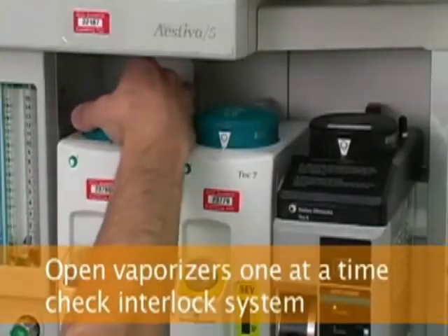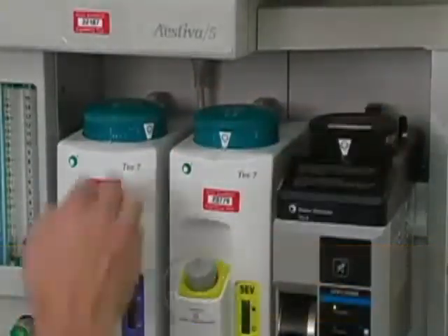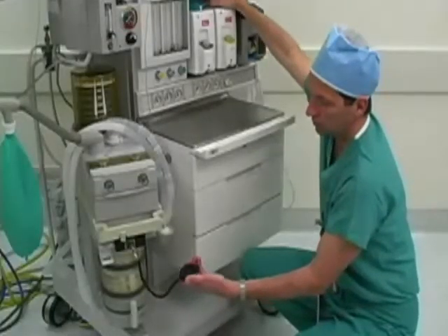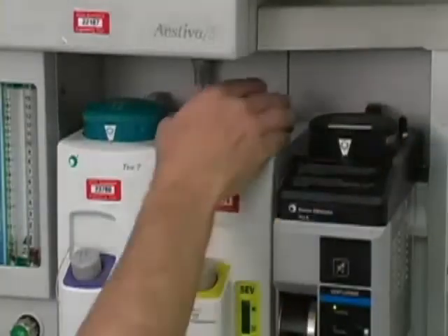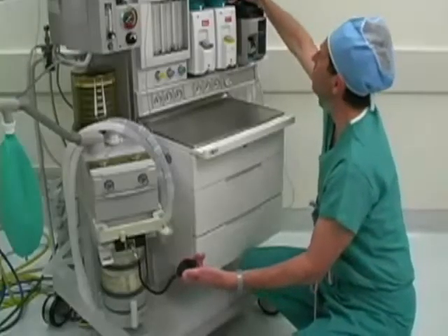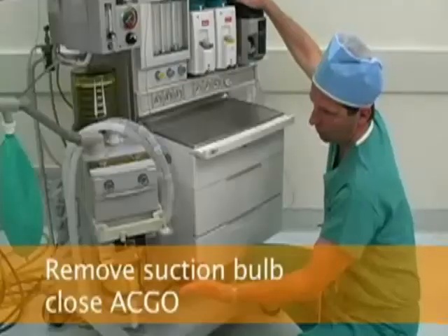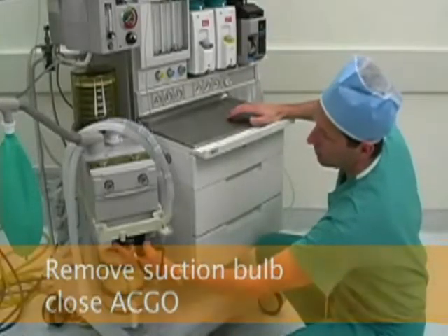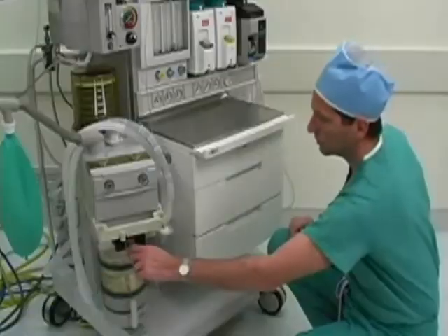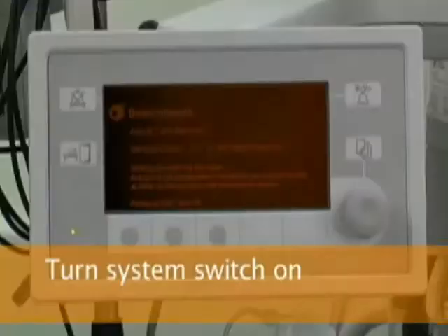Then check each vaporizer for a leak by opening a vaporizer, squeezing the bulb several times till it stays deflated, and verifying that the bulb remains deflated for 10 seconds. During those 10 seconds, check that the vaporizer interlock system works by trying to open the other vaporizers. Repeat the process for each vaporizer. Then close the auxiliary common gas outlet by lifting it up to its original position and remove the suction bulb from the common gas outlet. Turn the system switch on and verify that the machine display turns on.